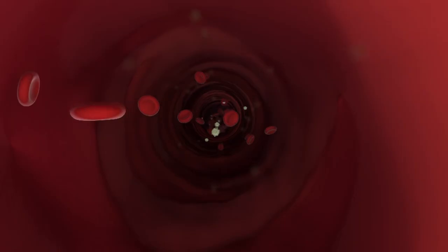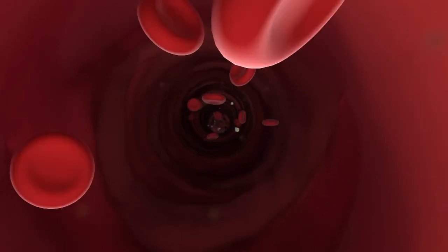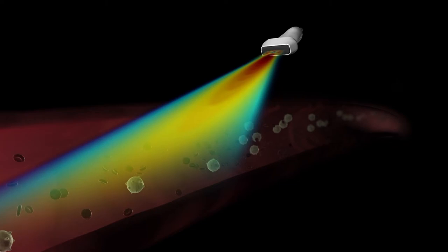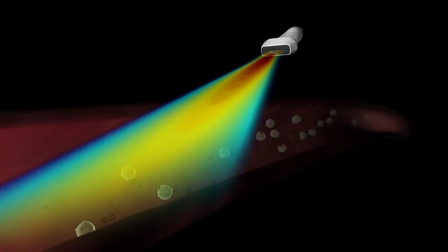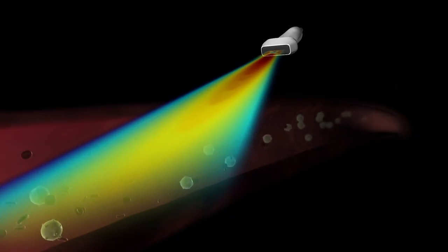Doppler ultrasound uses the same principle to determine the speed and direction of the blood inside your arteries. The transducer is held at an angle to the blood vessel, and the altered frequency of the echo returning to the transducer from the blood flow tells the computer the blood's speed and direction.